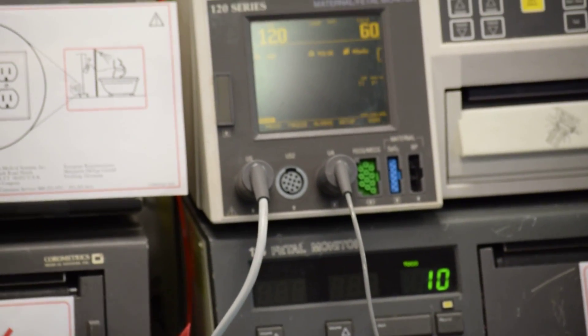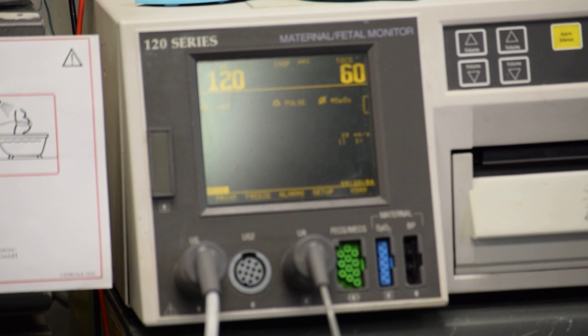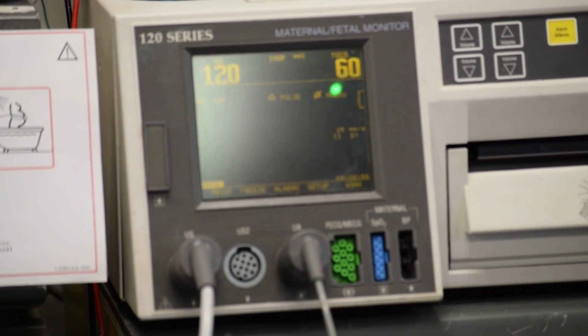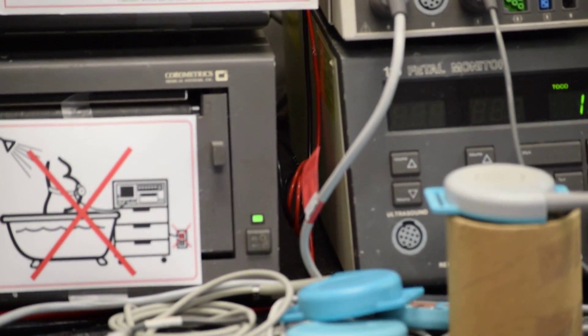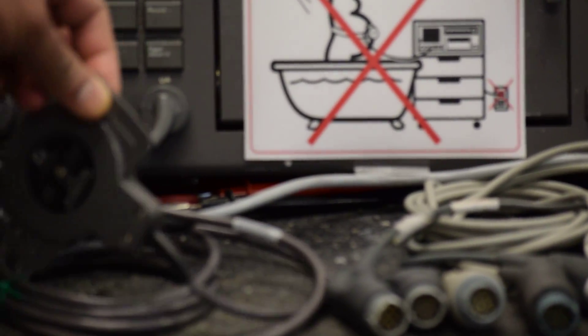That is the setting on the simulator. The TOCO count baseline is 10, and the actual simulation setting here is 50, so it is giving us a reading of 60. Let's test this 5700X ultrasound transducer connected to the 116 monitor here.